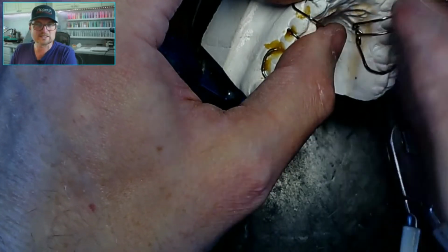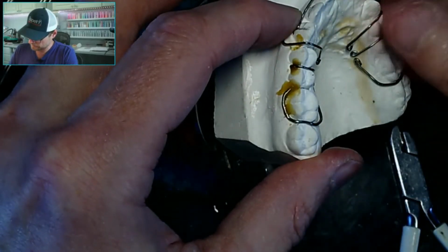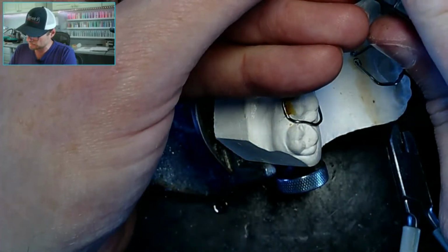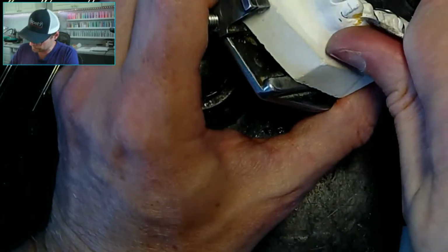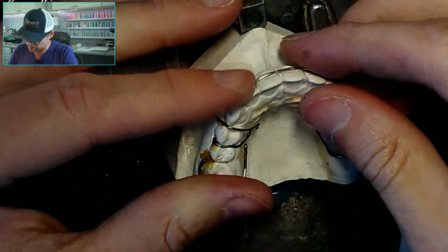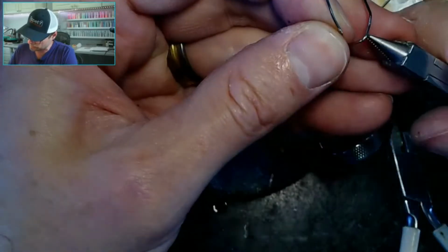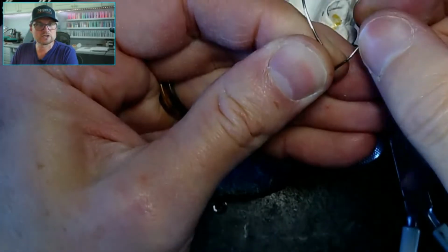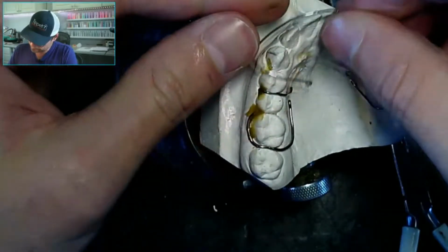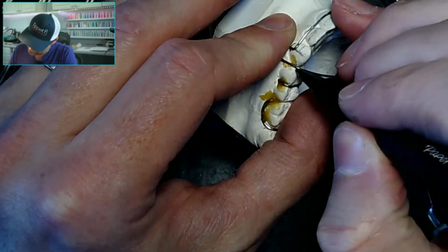So this is going to change where this is at. See, this is so much taller now in the embrasure. So I'm going to bend this over a little bit, like that. Now, you do not want to do this too much on a real retainer because you can make this labial bow weak, because I'm about to unbend this joint right here. I'm going to do it real gently. All right. That way I don't damage that turn too much. Put it in here. So I'm putting this down, I'm holding it with my thumb as I'm working over here. Make my mark.